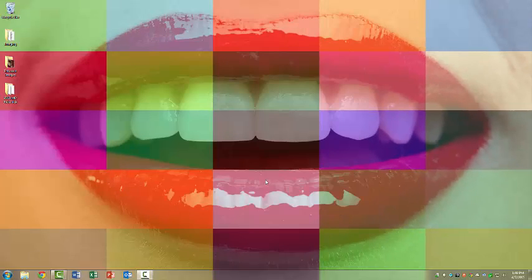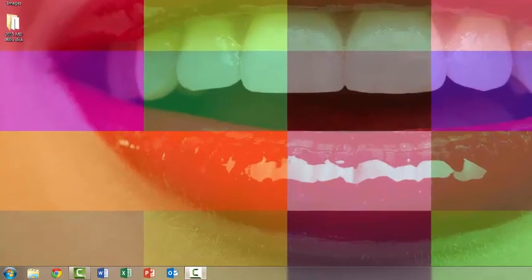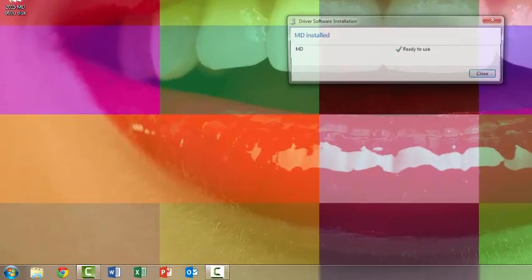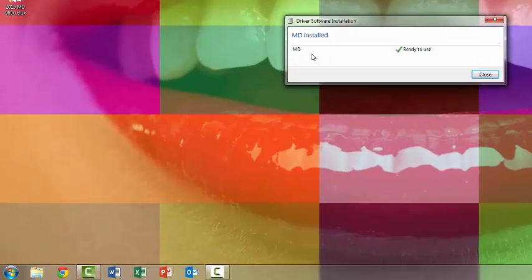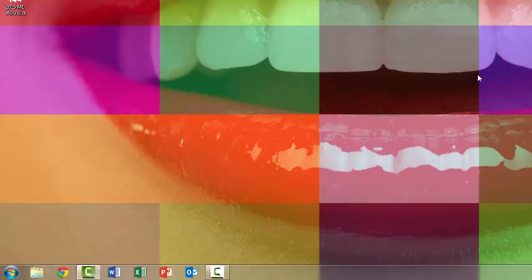We're back from our reboot, and now it's time to plug the camera in. And the next thing you know is that you'll see in the lower right-hand corner the driver is starting to be associated with the chipset. It's been installed. You can see that it now says MD. And you can see that it says MD installed and ready to use.